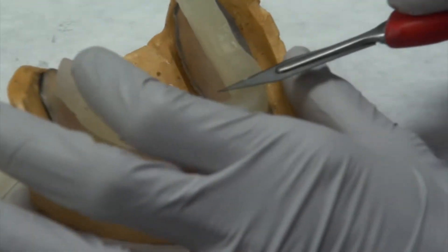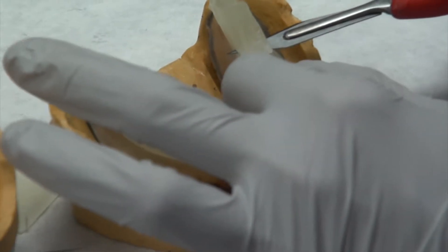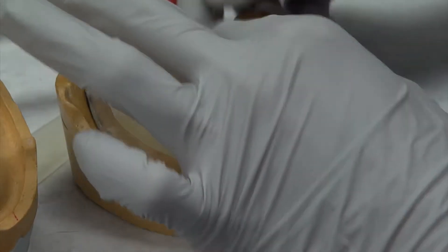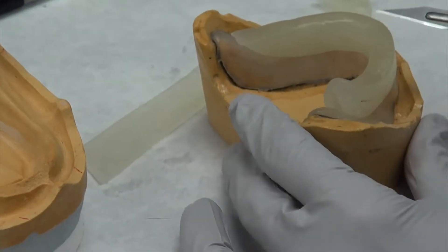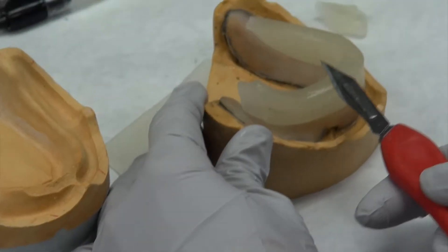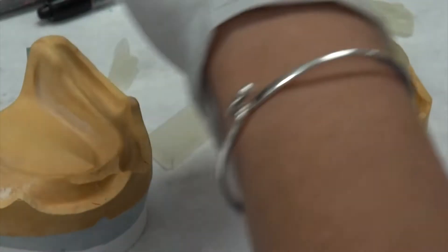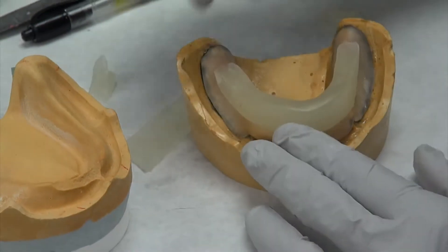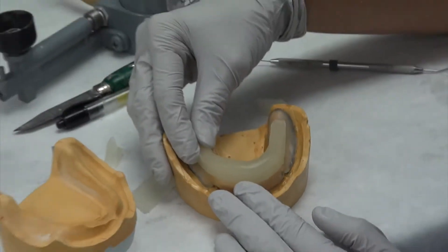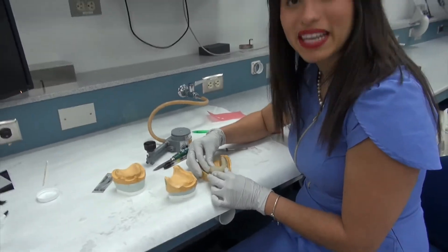You can come over here and just glide along the flat surface and just come back on it. Same thing, gliding along the flat surface and just have it back like that. And then from there, it'll be the exact same steps as you did for the maxillary.